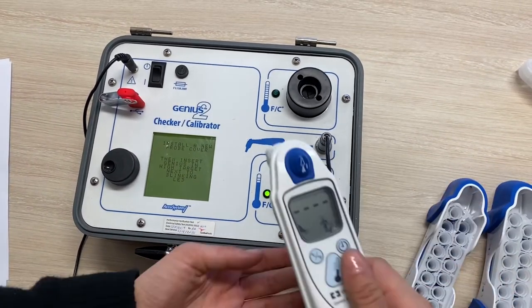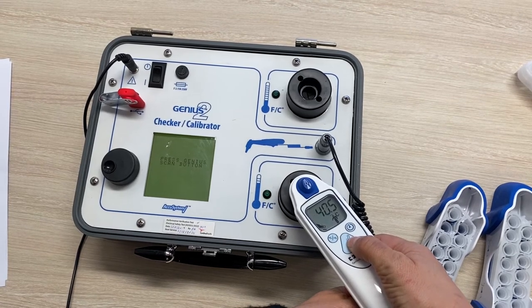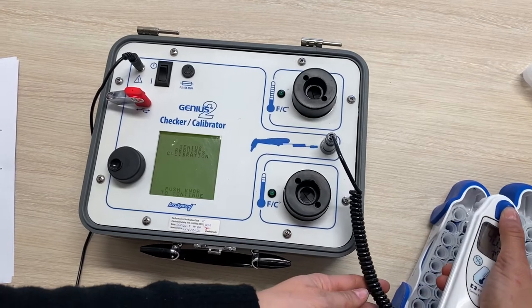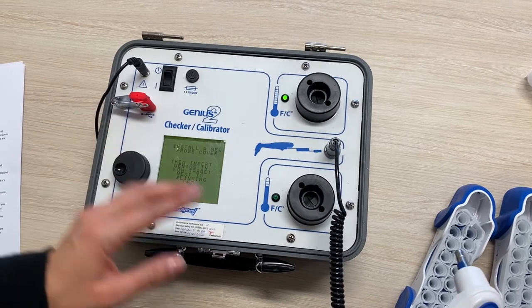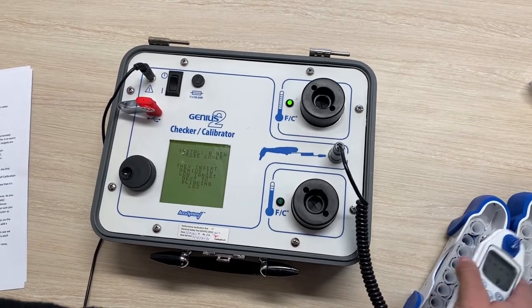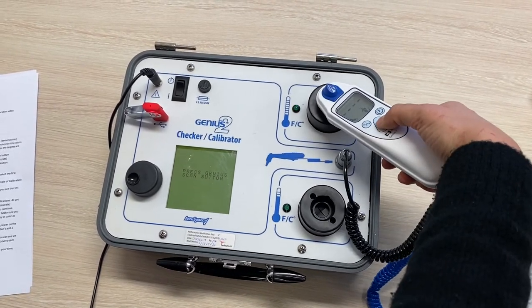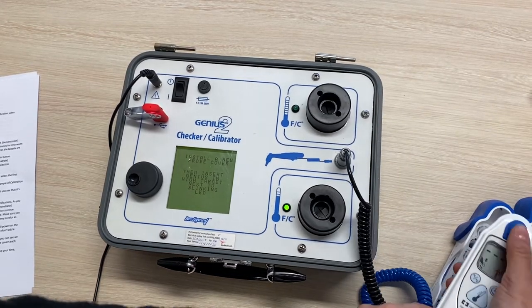If you were used to calibrating before the recent software upgrade, you may not be used to these new display screens. You may also be used to the first two times being a calibration check. However, the variance limit on the calibrator was intentionally tightened so the thermometers will rarely pass a check and will force a calibration. Also, more calibration attempts will be required.